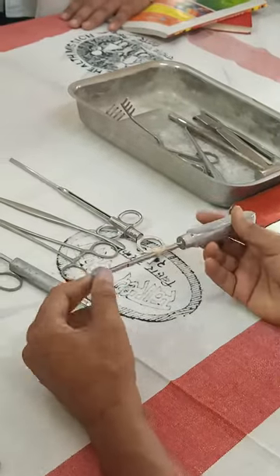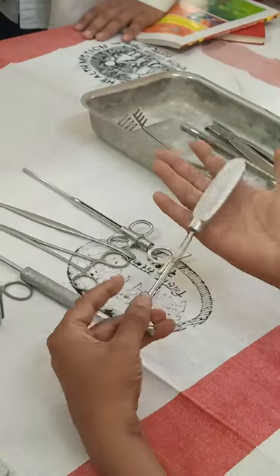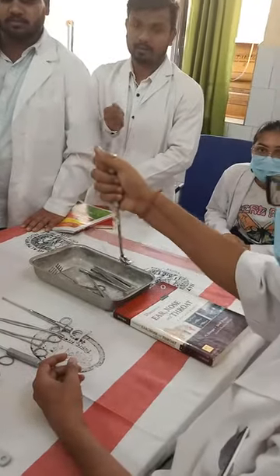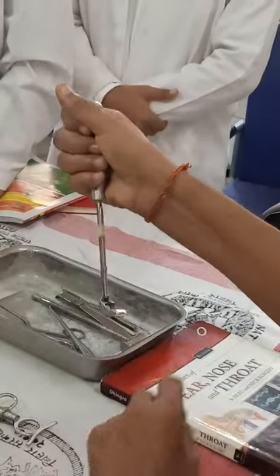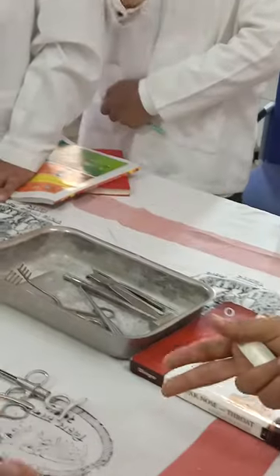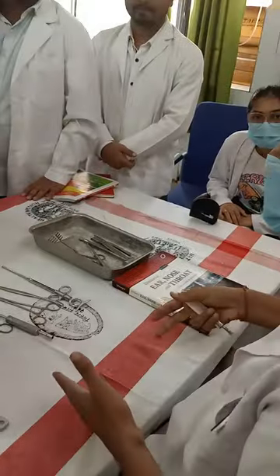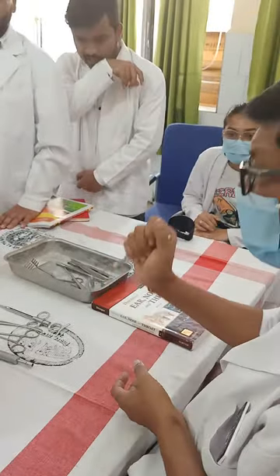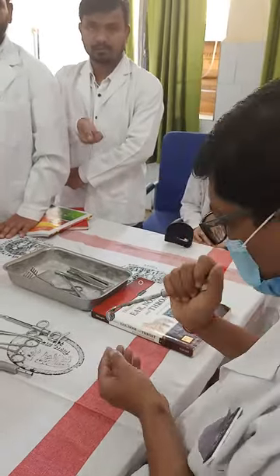How to hold this instrument? Like this. Where is the blade? It is held like this — it is called a cuff grip. We have to hold it with the hand down and put it inside.